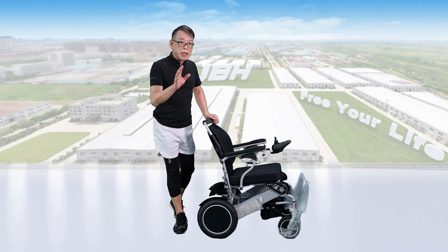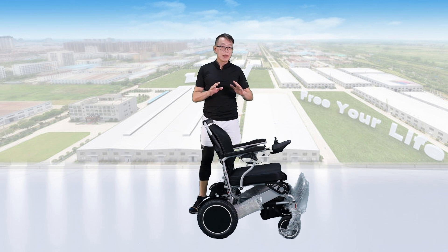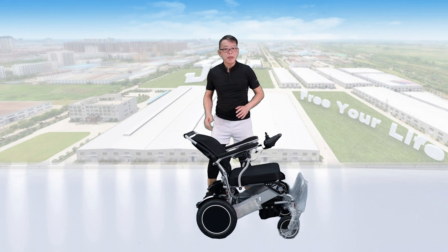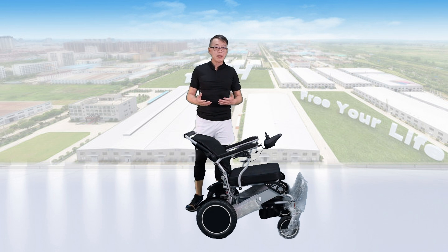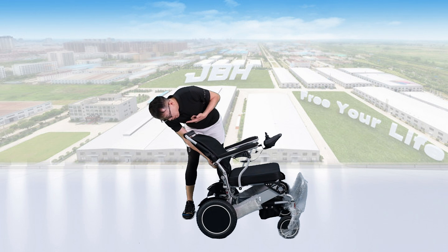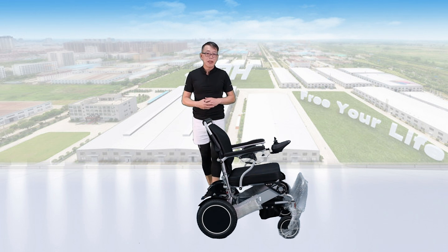The DO9C wheelchair is really unique because we have a gas lift for continuous seat back angle adjustment. You can stop anywhere within around 45 degrees of tilt, which increases a lot of comfort. If you want to push it back, just hold the lever and it goes automatically because of the power of the gas lift.